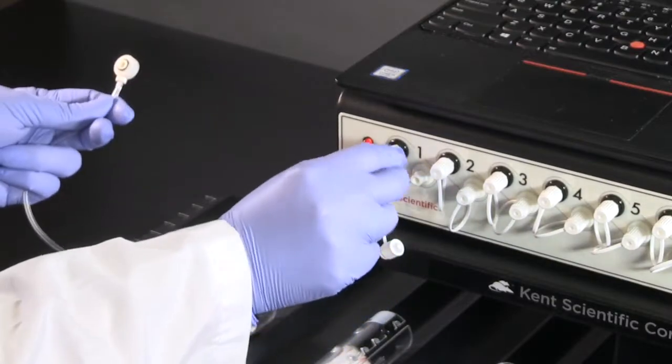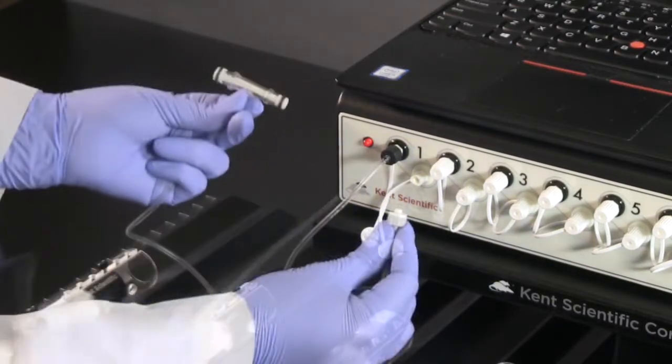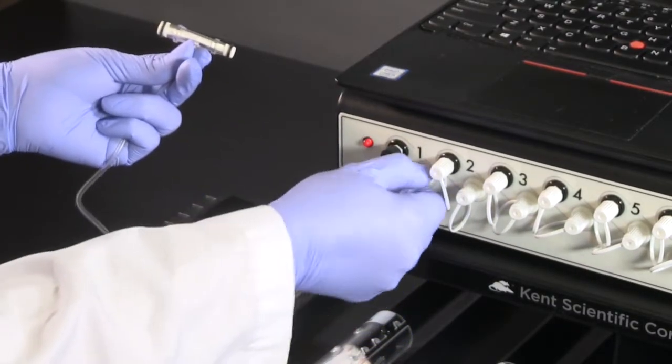Connect the occlusion and VPR cuffs to the controller by tightly securing the connectors on the front of the CODA system.